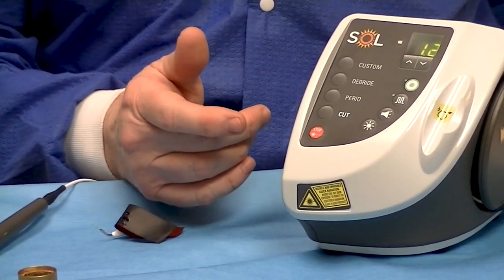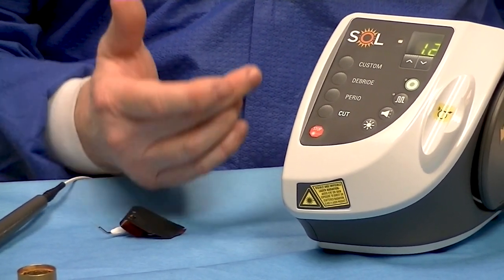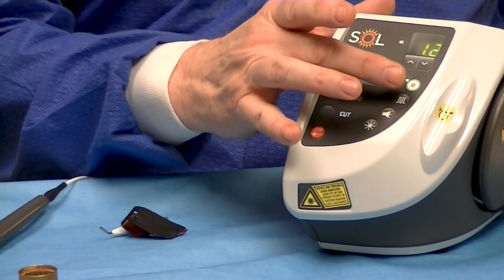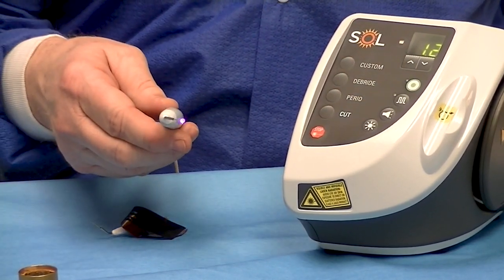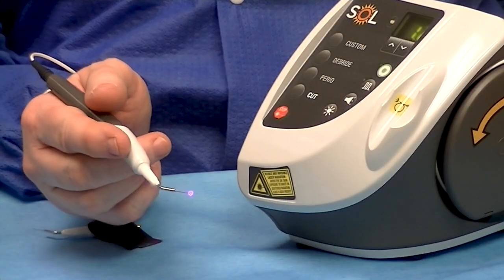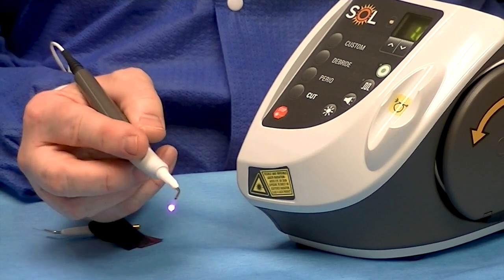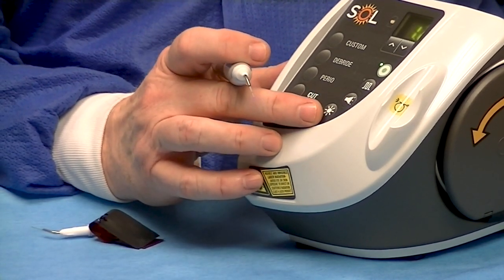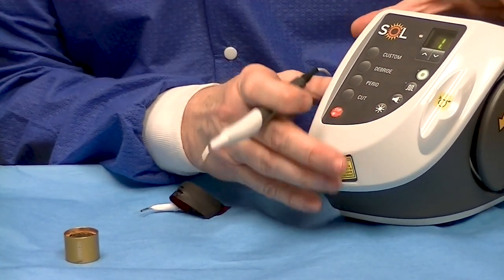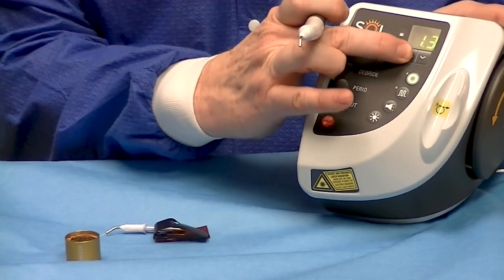You can see the wattage is listed. We talked about adjusting it up and down depending on how you feel or the pigmentation of the tissue. The machine will go into a standby mode when you turn it on and you have to activate it to use it. If you deactivate it, the green light is on and it will not work. We can control the sound if you want to hear sound — I like to hear it because patients feel that something is actually happening. We can also increase or decrease the brightness of the blue light. As we're using the light source, you can turn it up or down: level one, level two, level three, four, five — that'll increase the brightness.